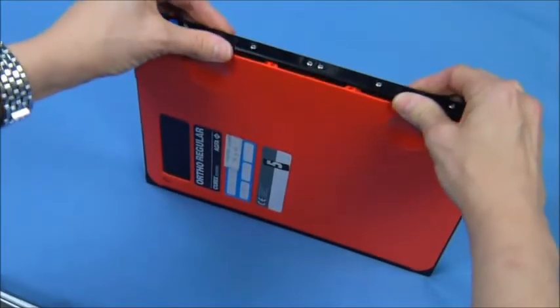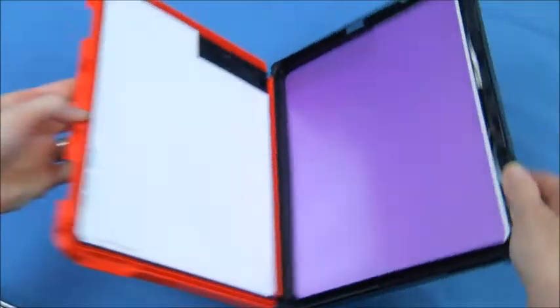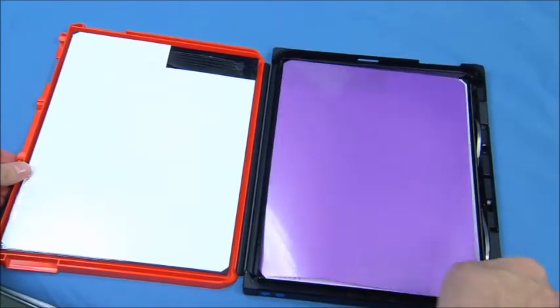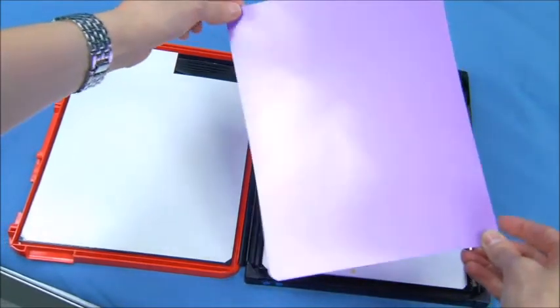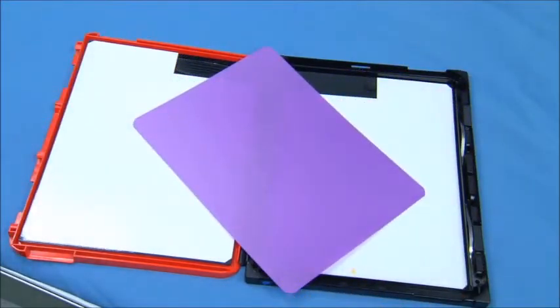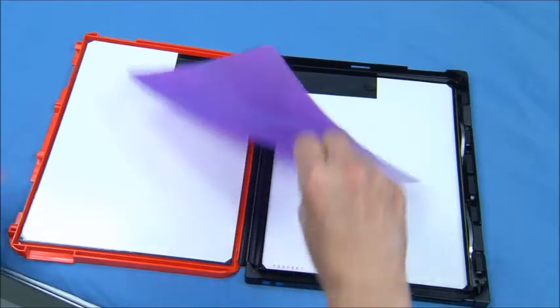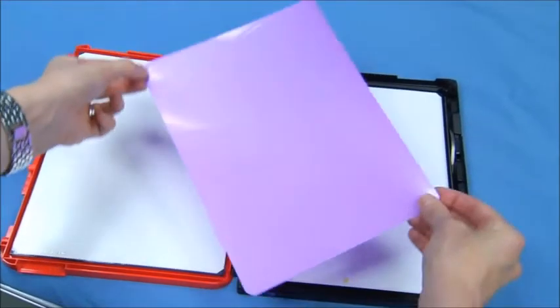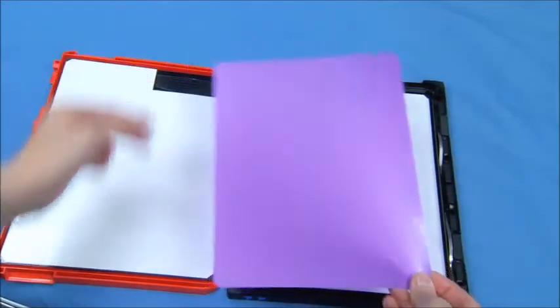Films have a blue tint and consist of two parts, the base and the emulsion. The majority of films are coated with emulsion on both sides, hence the term double emulsion film. The emulsion consists of gelatin and silver halide crystals. The base is dyed blue to prevent eye strain and enhance the image.